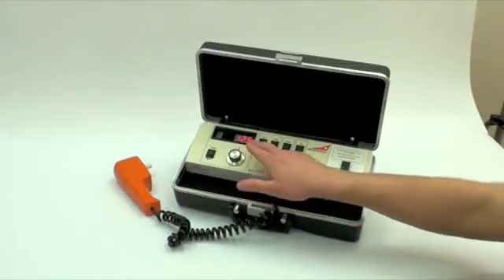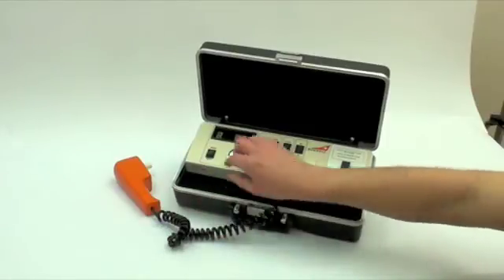To store that score, you press the memory button, return to zero.